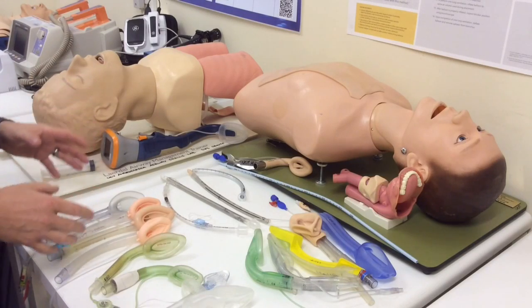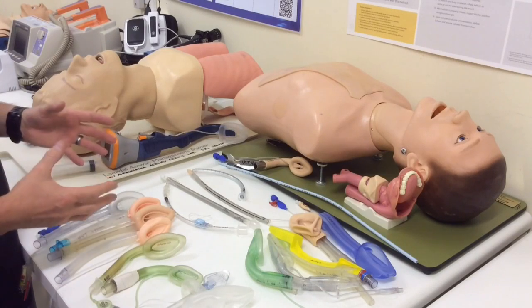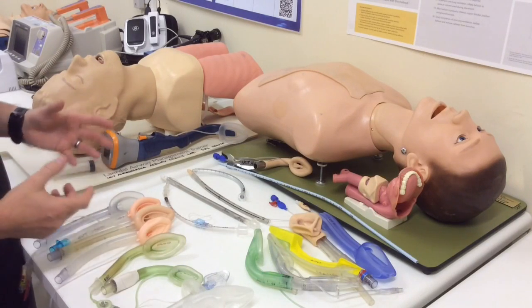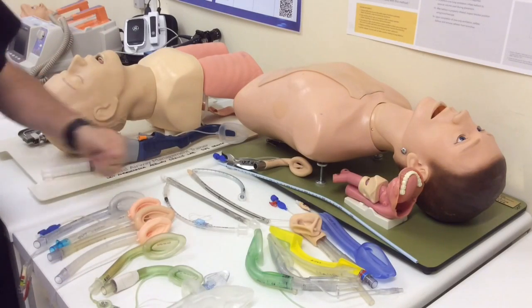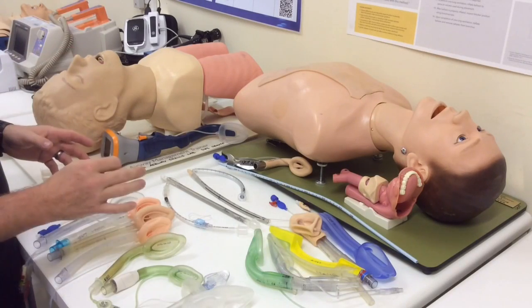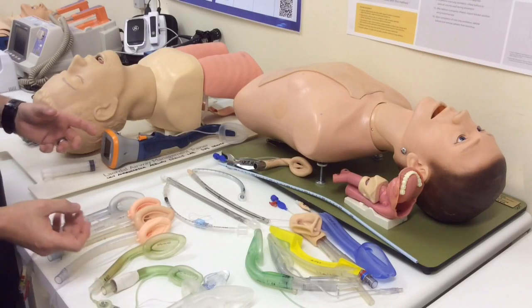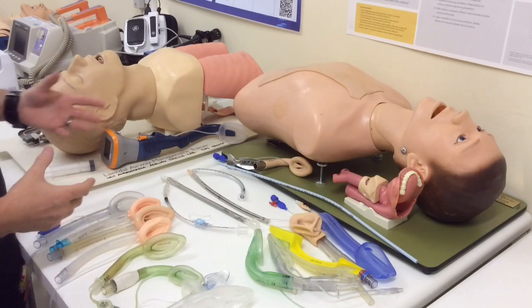You might want to do this where you have a patient under routine anesthesia with a supraglottic in place, where the procedure has escalated or the duration has extended and you now need to place an endotracheal tube, or perhaps the patient has to go to ICU. You don't want to lose the airway by pulling out your LMA and then having to re-intubate. Or it could be in a failed airway situation where you've rescued the situation with a supraglottic and now you want to send the patient for a CT scan and want an ET tube in place. Or perhaps the patient has been brought in from a resuscitation with a supraglottic in place and you now want an endotracheal tube for the patient to go to theatre or ICU.